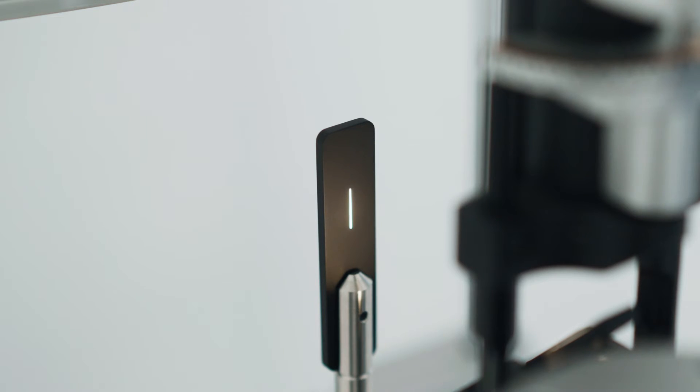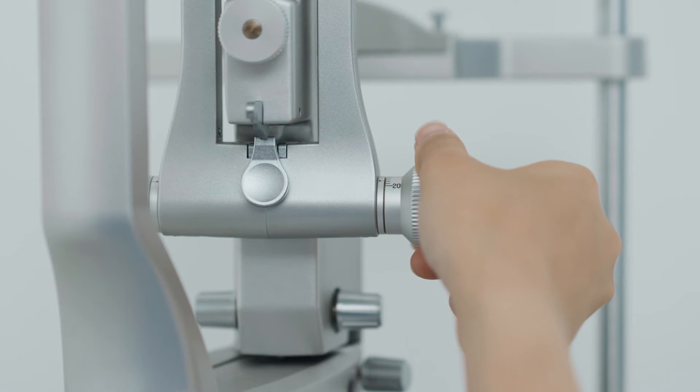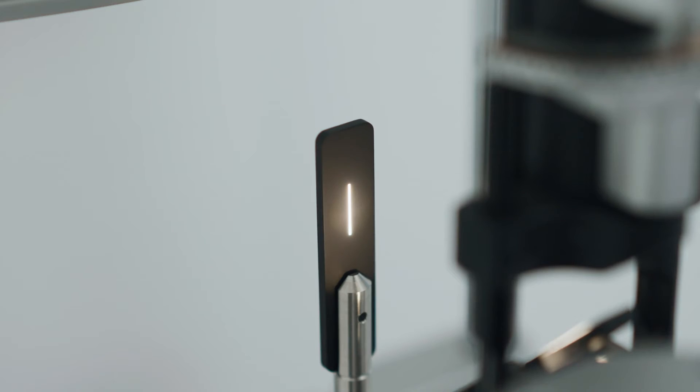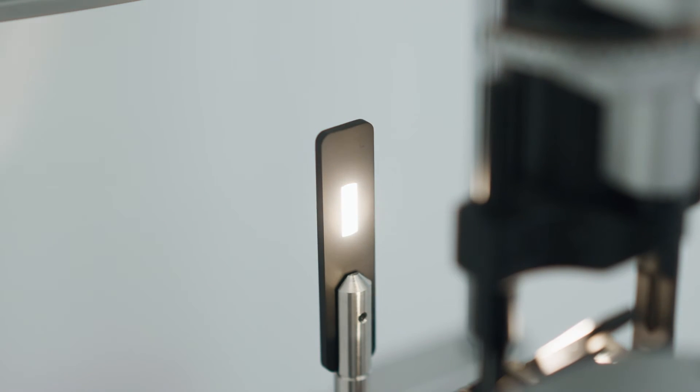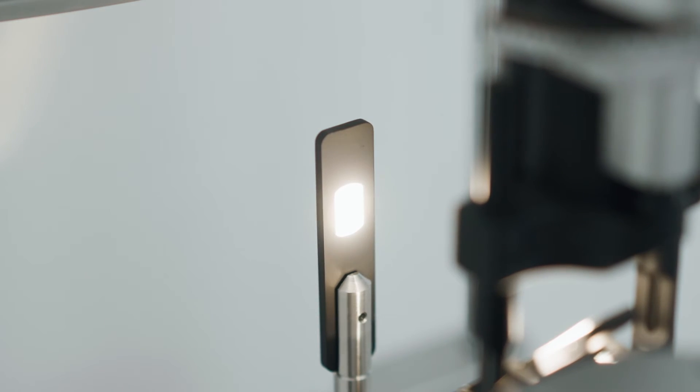Takagi's LED technology achieves a warm white color and natural observation images as well as sharp-slit illumination similar to that of halogen light on all slit lamps.